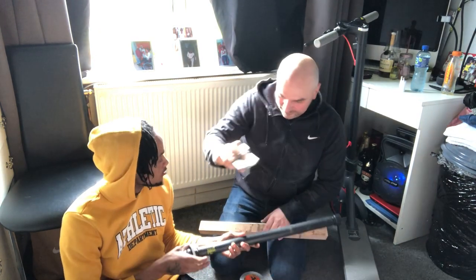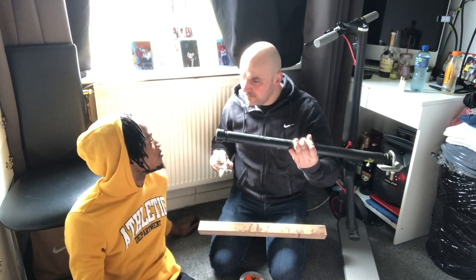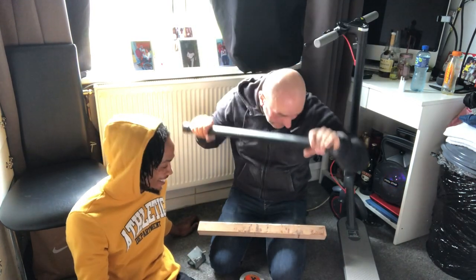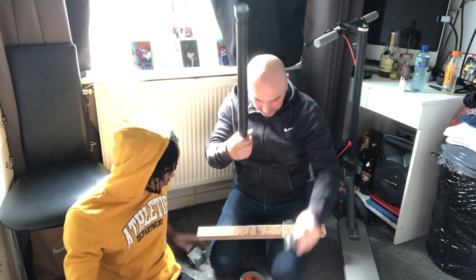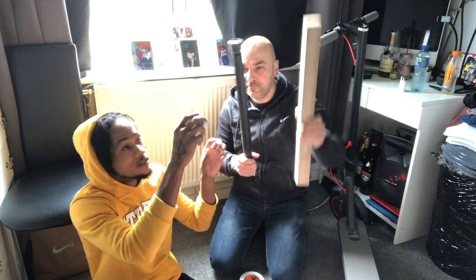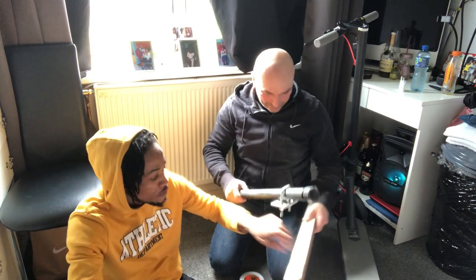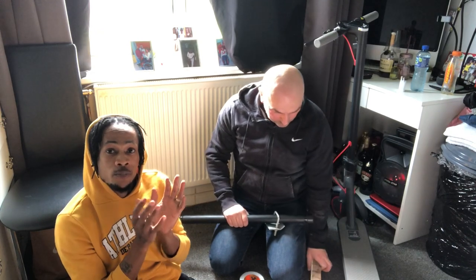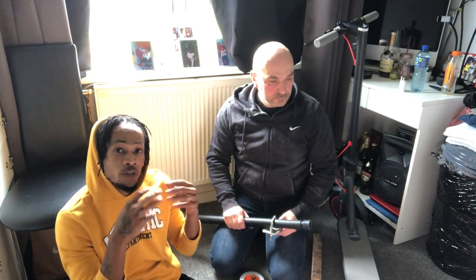So first — show them. We got two clamps and this, so we have two clamps guys. We are going to clamp this, put the clamps on this, and clamp it to the scooter guys. Because everybody has a different chair, so based off of my chair we have to do it this way. Everybody does it a different way.